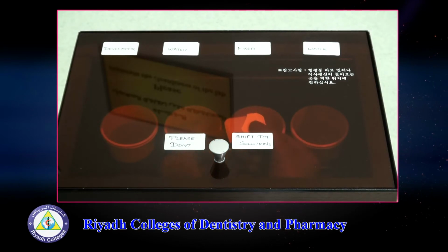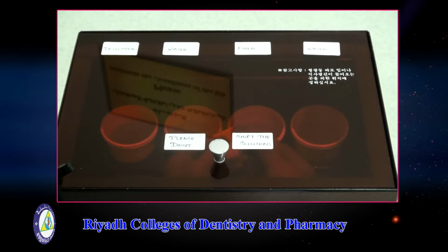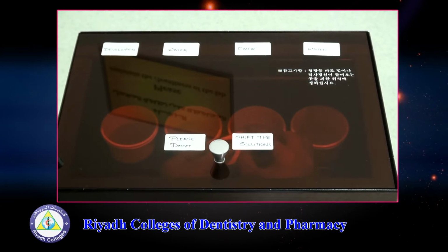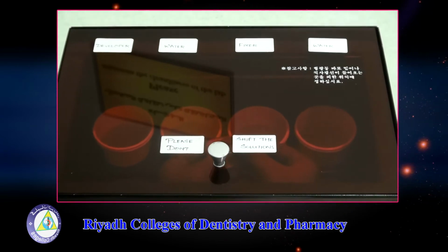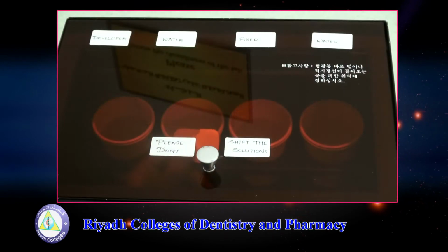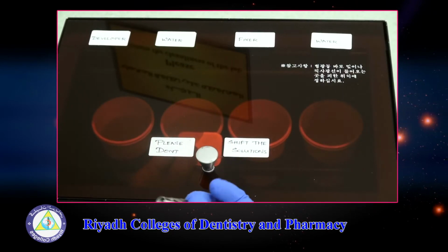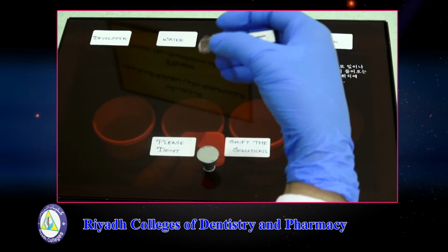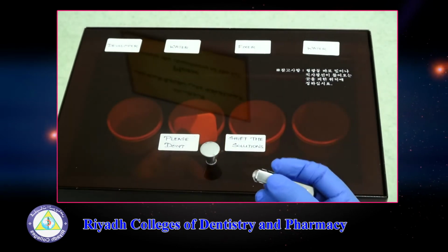So when we open the X-ray film, we have four layers. First is your outer film packet. When you reflect that, you will see the black paper. Then you have the lead foil, and inside is your X-ray film. Okay, now we are going to start processing. Now this is a film holder which is used to clip the film and pull it outside your film packet.